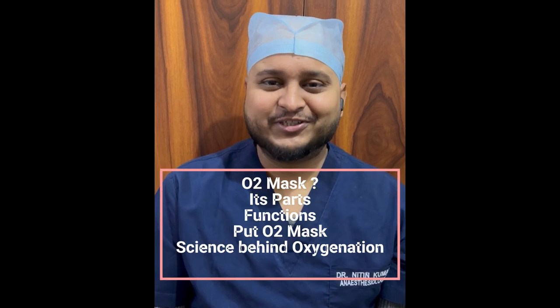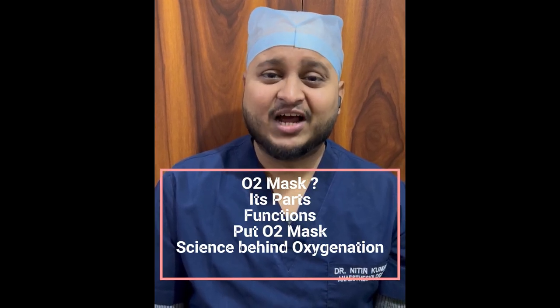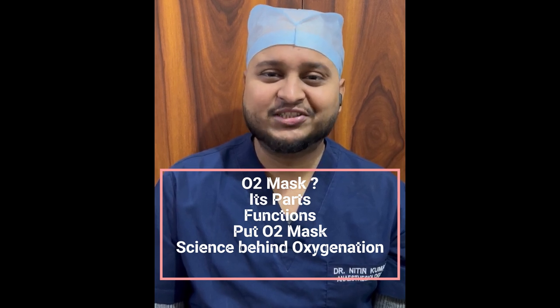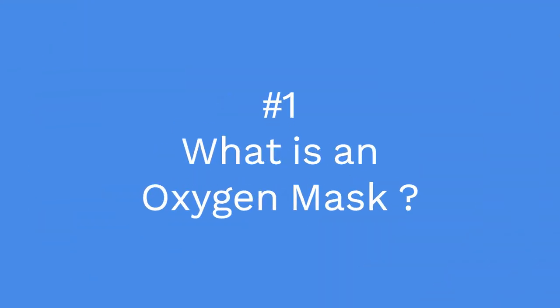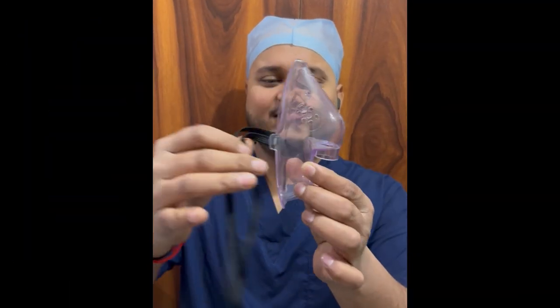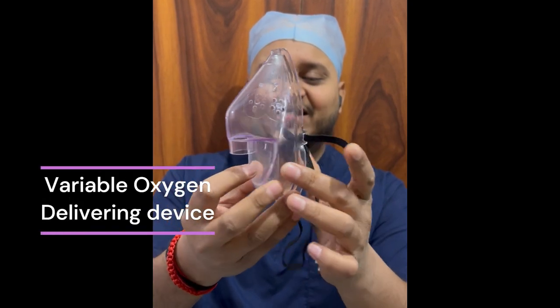Hi everyone. In this video I am going to teach you what is an oxygen mask and the parts of an oxygen mask, how an oxygen mask functions, how to put on an oxygen mask, and the science behind giving oxygen to patients. This is an oxygen mask — it is an oxygen delivering device which we use commonly in our clinical setup to give oxygen to patients.